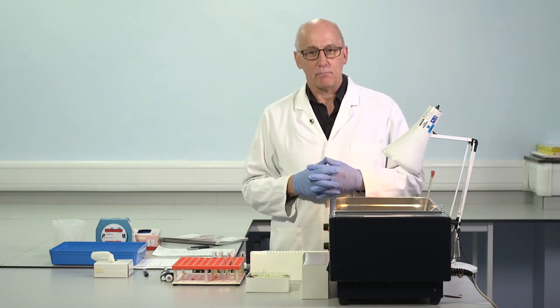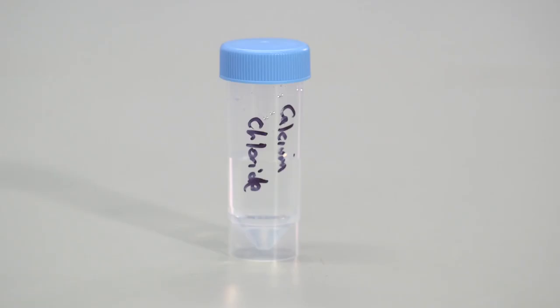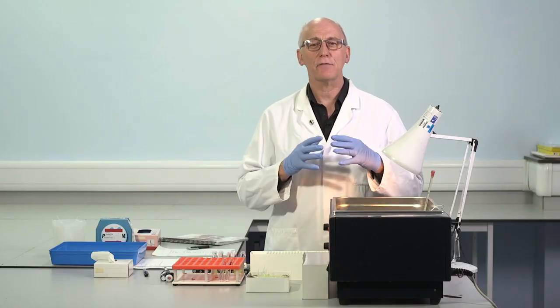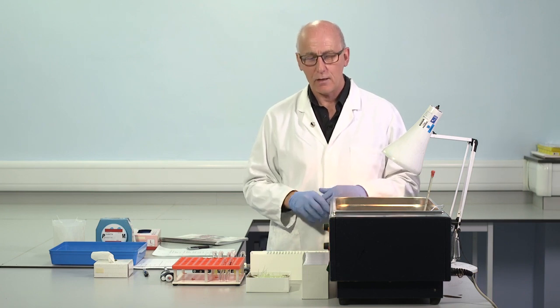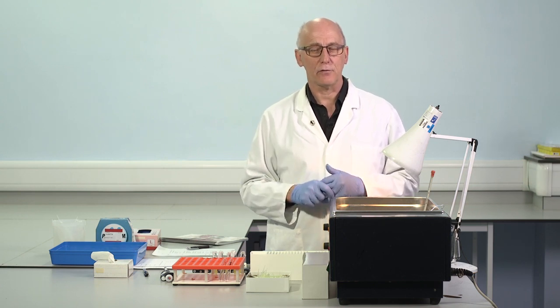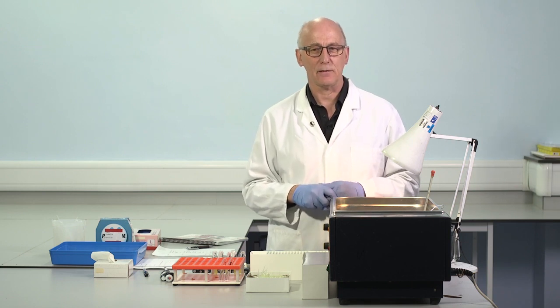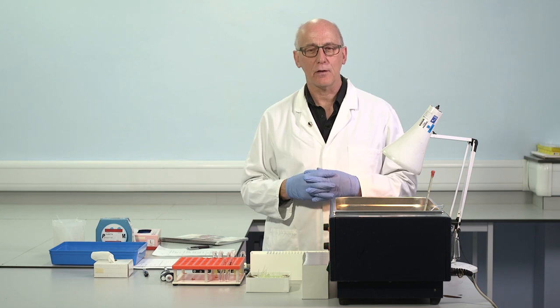The second reagent, as you know I'm sure, for an APTT is calcium chloride. There's no absolute agreement on which concentration should be used. However, the vast majority of reagent manufacturers, the vast majority of laboratories are using 25 millimolar calcium chloride. If you maintain a stock solution at molar concentration, that's a 1 in 40 dilution in distilled water. This is the most frequently used concentration.